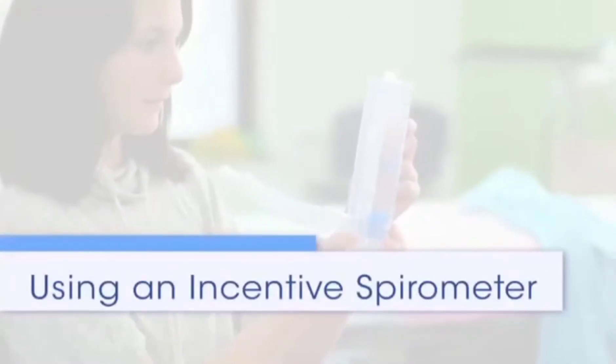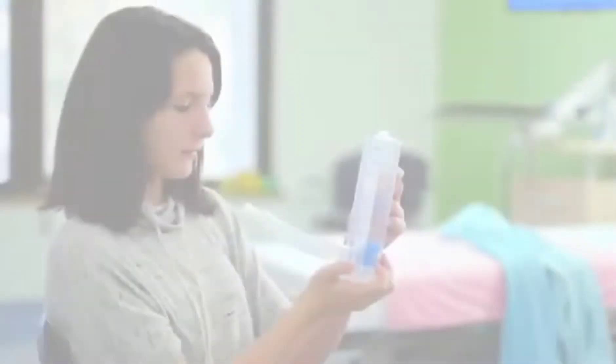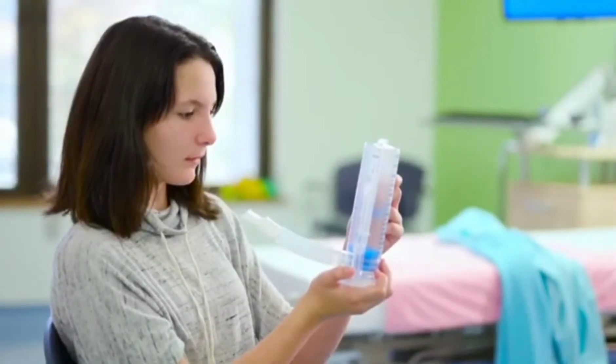An incentive spirometer is a device that helps you take slow, deep breaths. Using it correctly keeps the lungs working well and can help prevent problems like pneumonia.